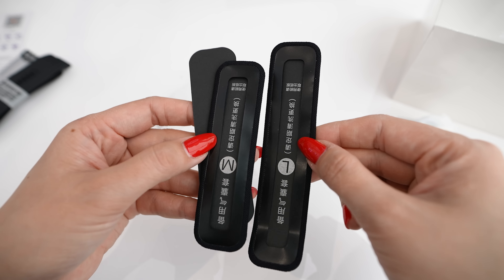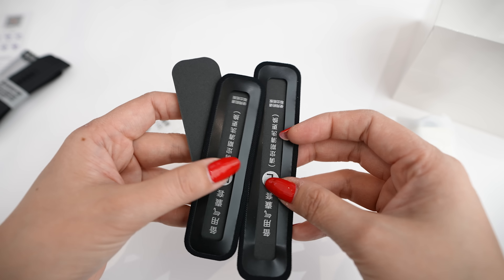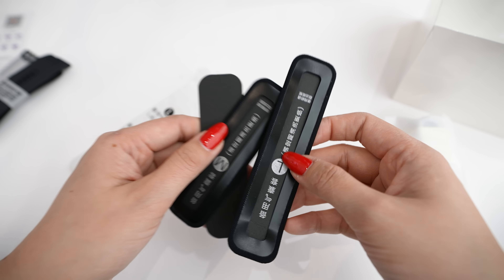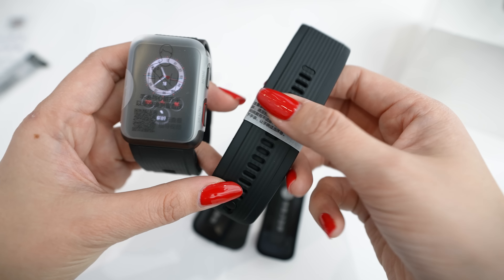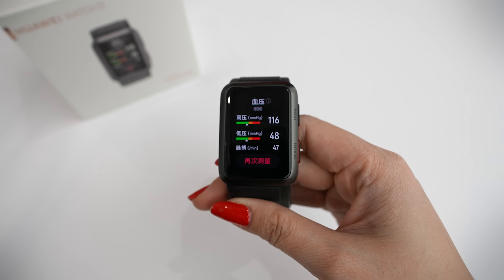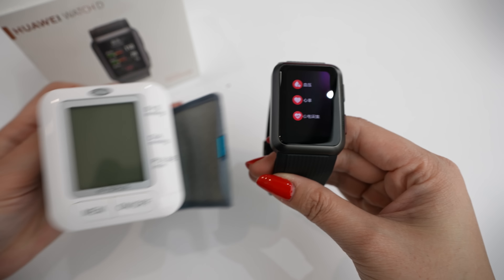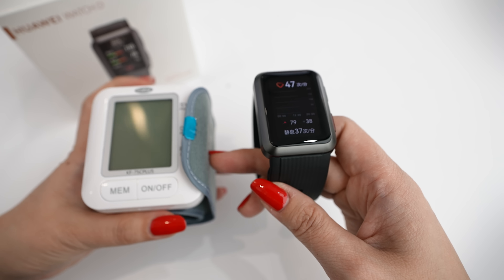They also send you two extra pieces to help you put it on your wrist, and this part here protects your skin from the inflatable section. The device already comes with a strap, but they include an extra size M in case you need to change it. And finally, here we have our Huawei Watch D.